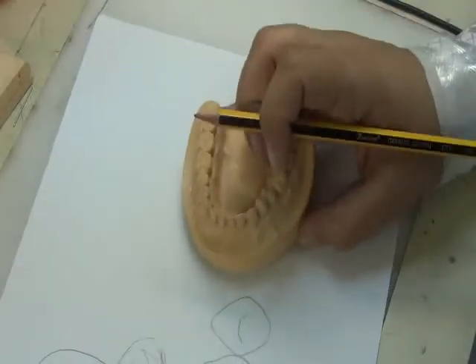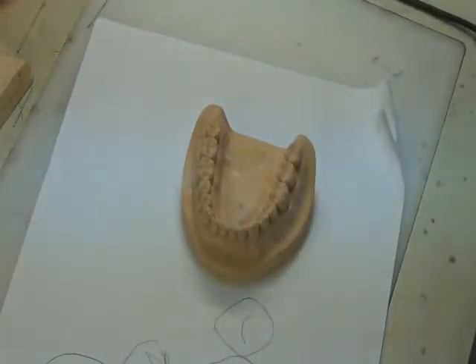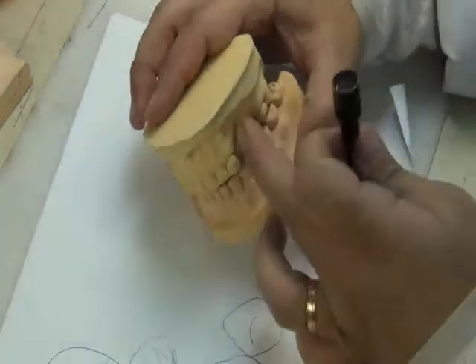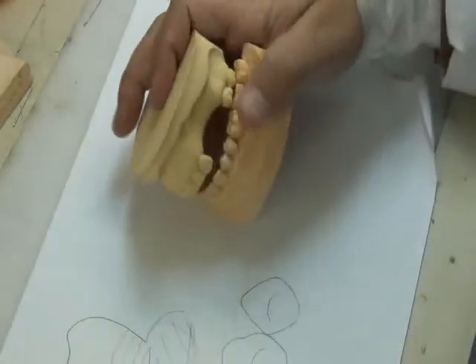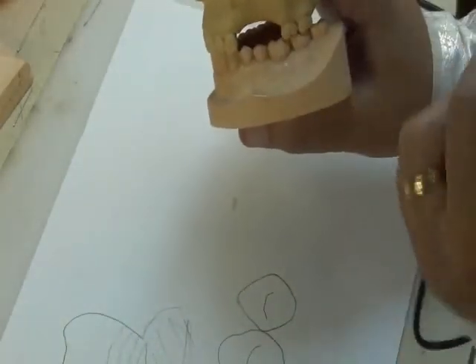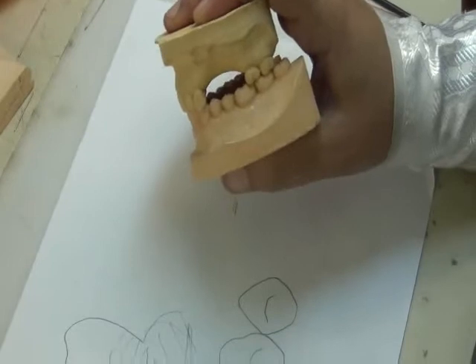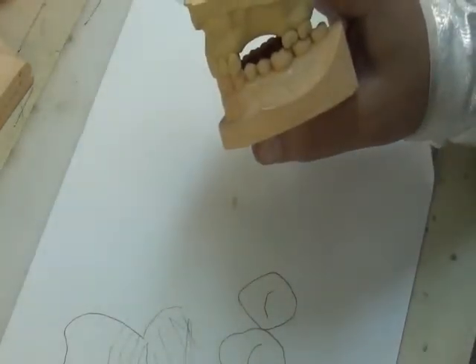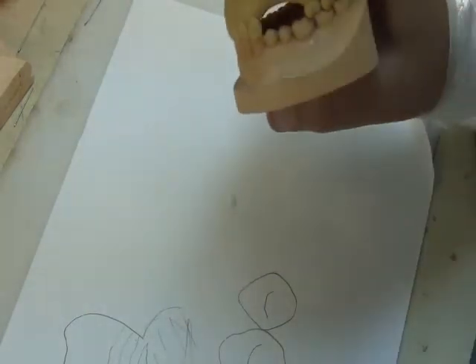But sometimes, even when we finish selecting everything, and I want to set the teeth according to this cast, remember that we have an opposing arch. So if this is missing, suppose this is missing, in this case, try to hold it in place. Okay. So suppose this area is missing, and I want to put teeth. I need to know where is the occlusal level of the teeth. And this has many cases. The first case scenario is that we have an opposing occlusal table, and it's uniform. The teeth are still in line with the occlusal table.